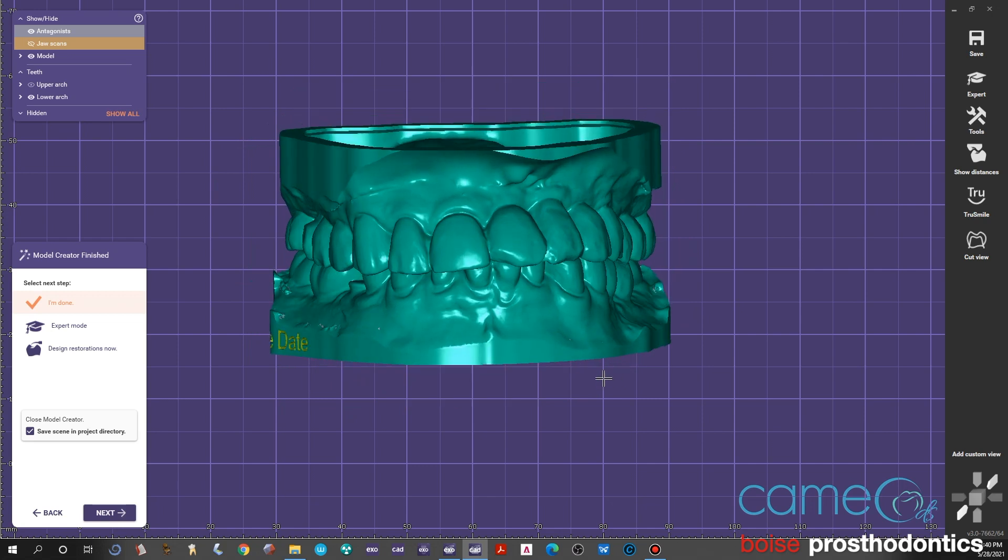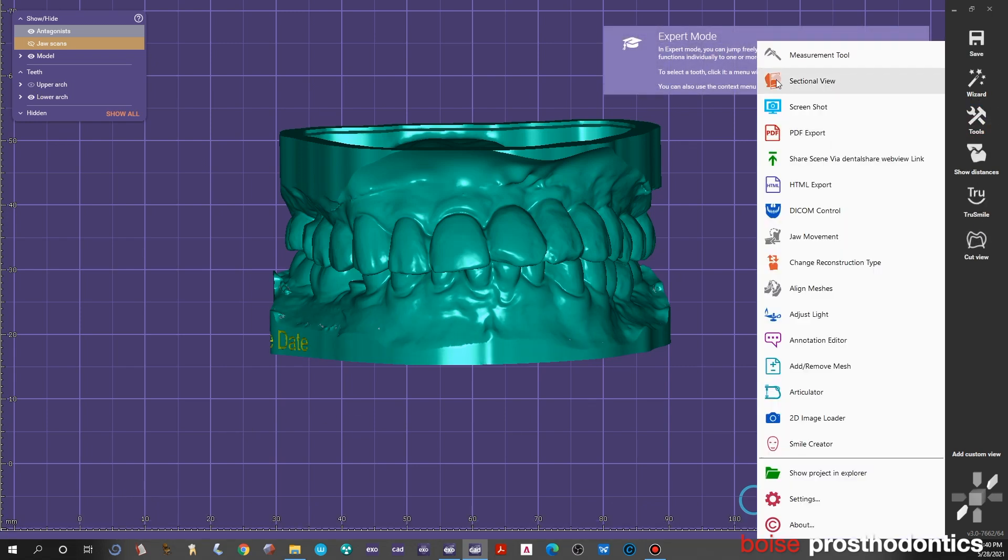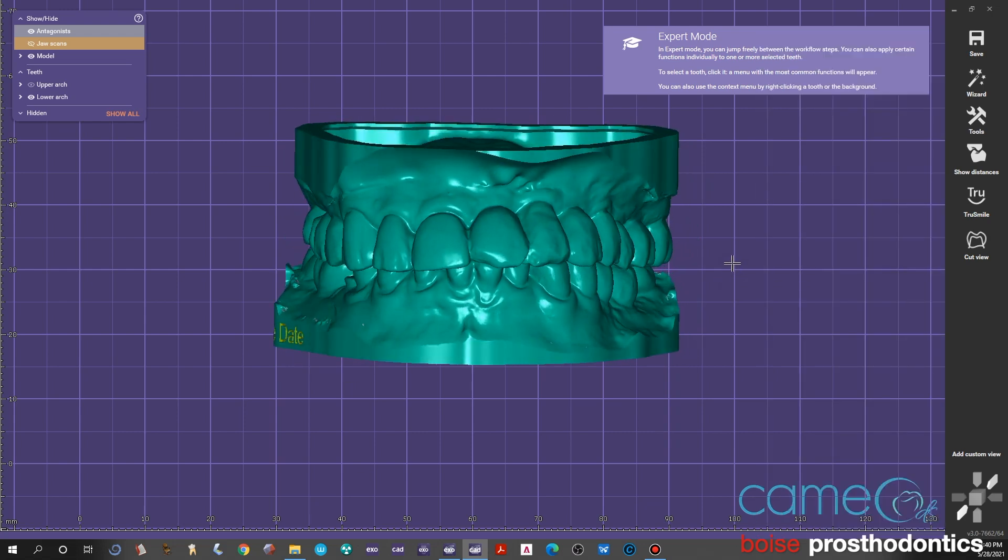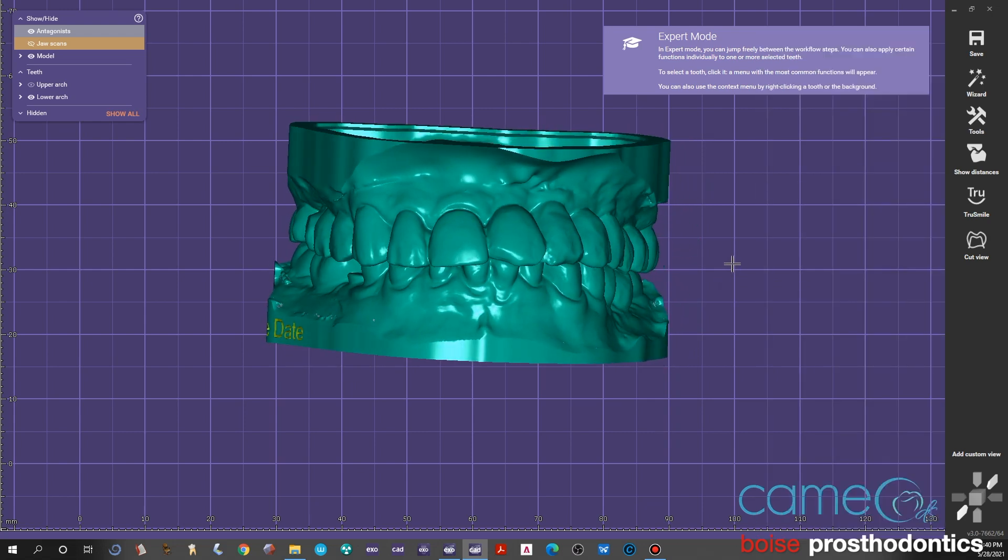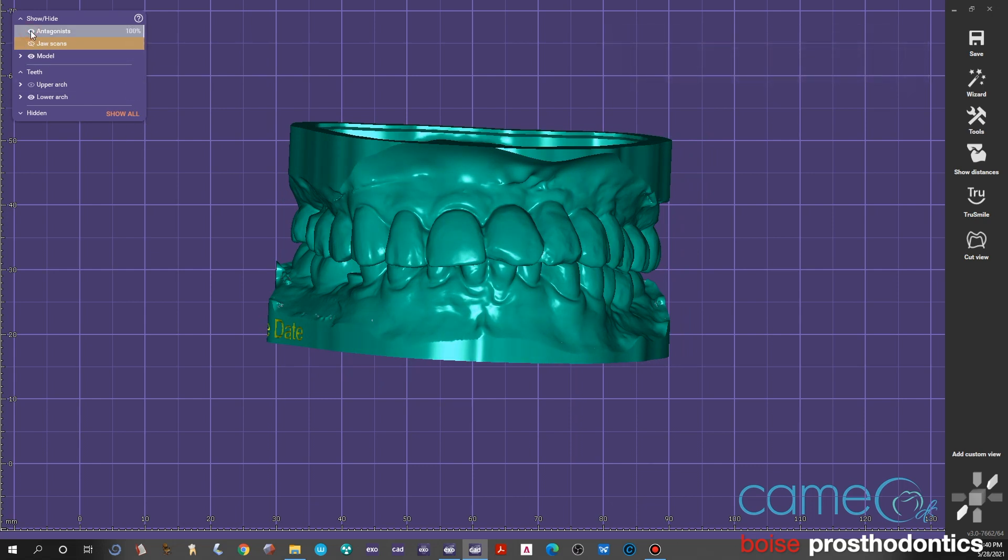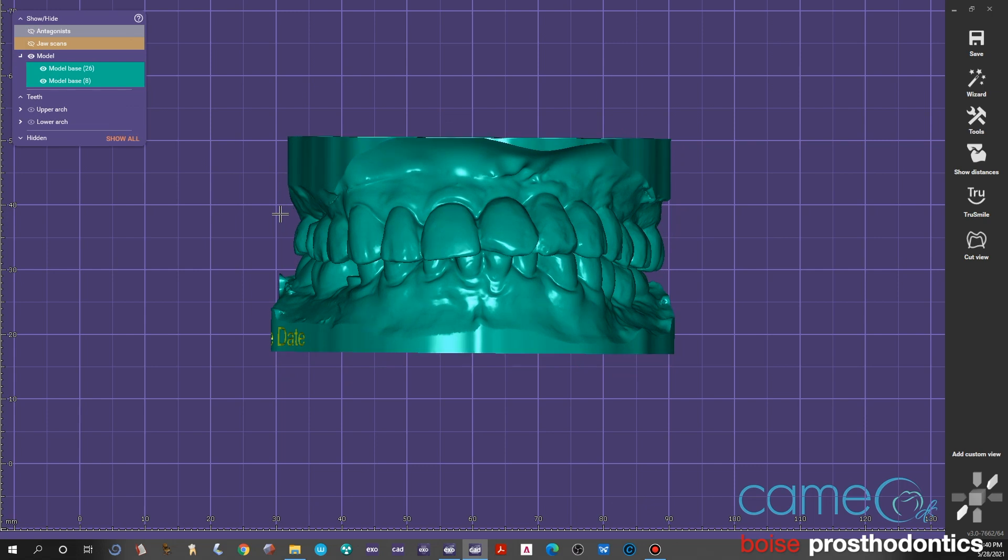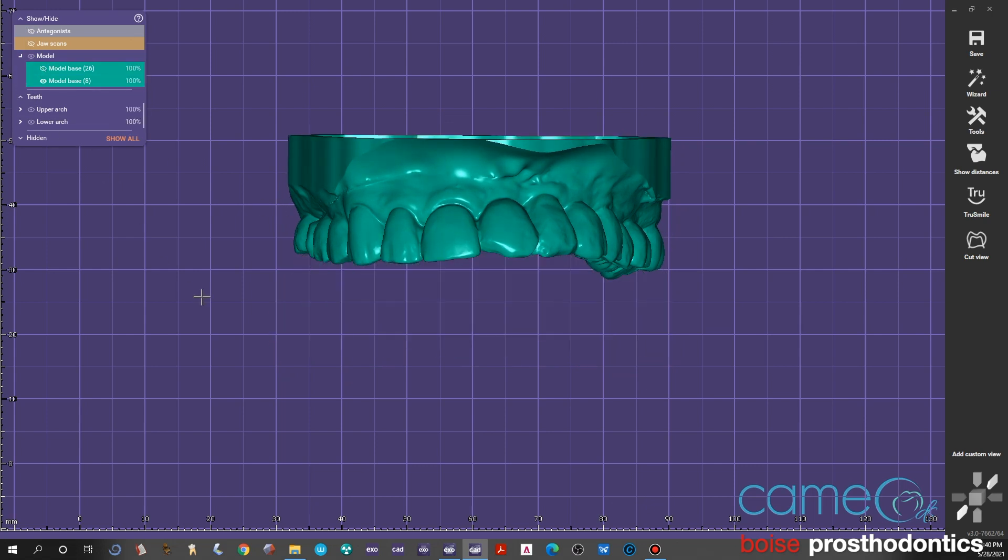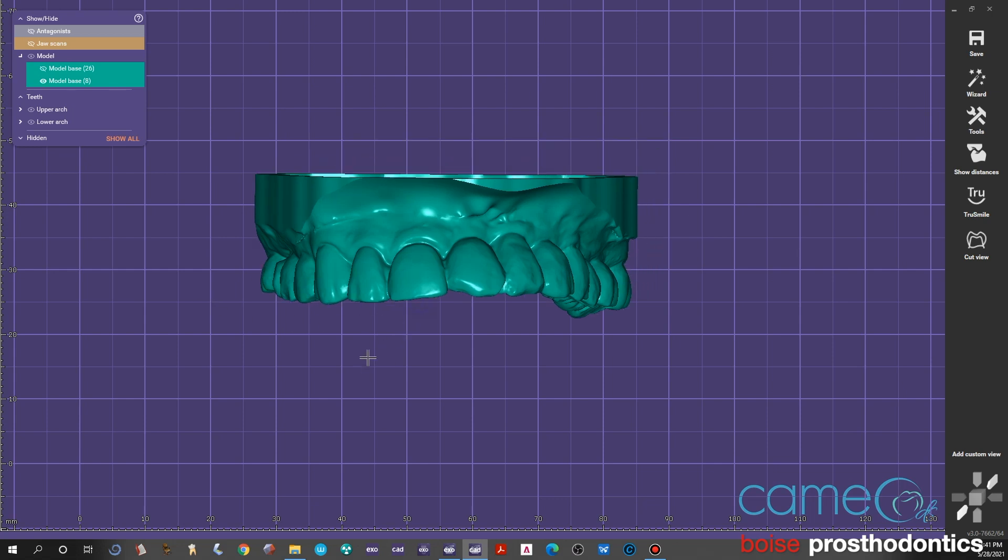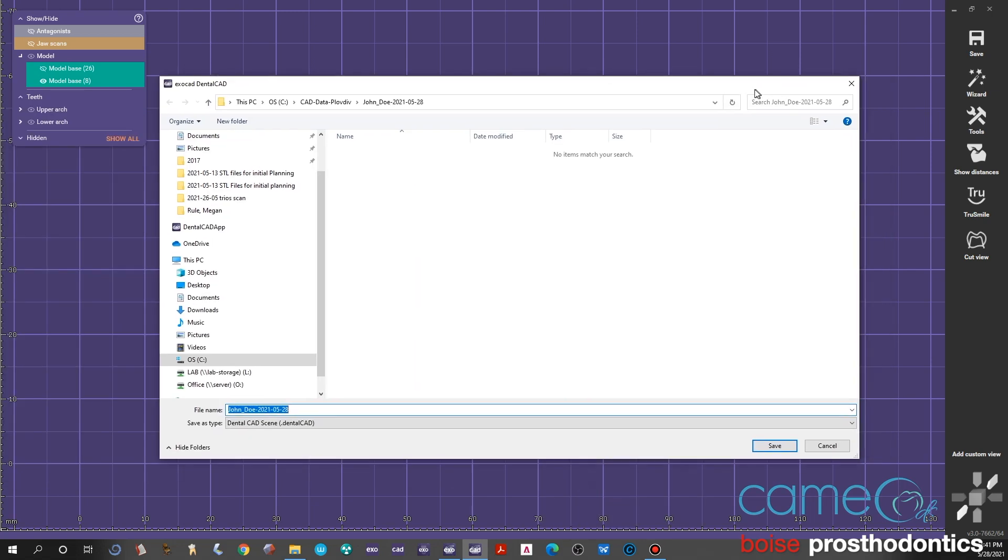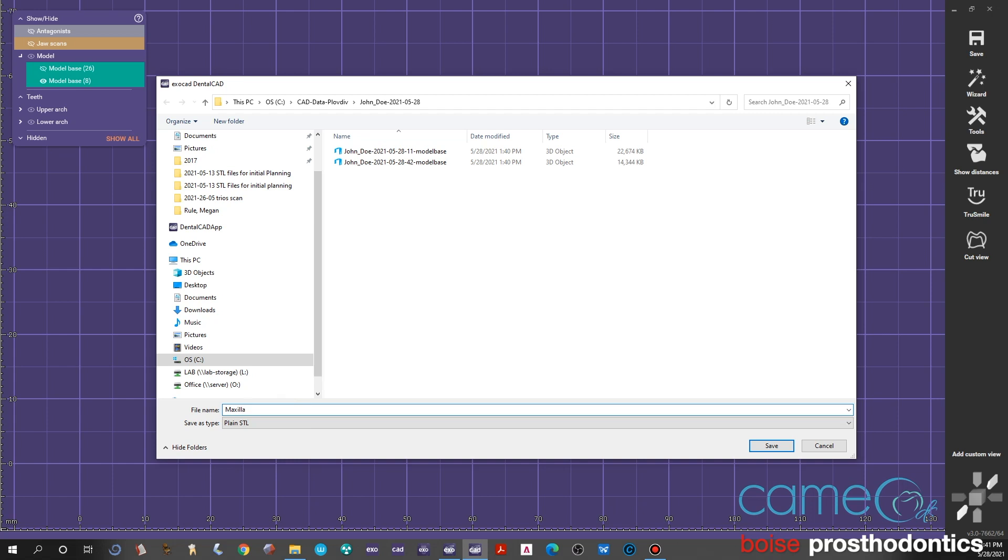I'm going to do something here that we like to do because we found it keeps the orientation that's already in. Go to expert mode and go next. We will save individual models as STL files—there's lots of tools you can use there, but for all intents and purposes here we will save each individual model. Doing so, we turn off all the other images or meshes and we just leave one on, and we'll right click the screen and we will click save as, and then we will click on STL. We'll find the file that you would like to save it in—in this case we're just going to save it within the same CAD folder. Maxilla models, usually what we label it as, or diagnostic model.